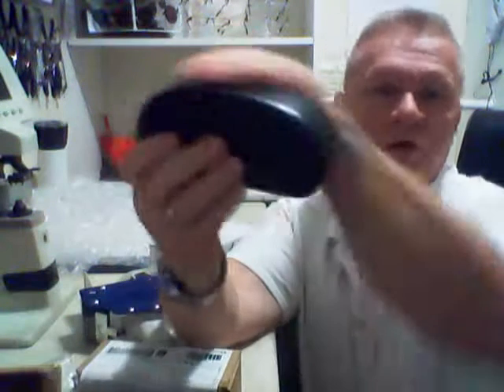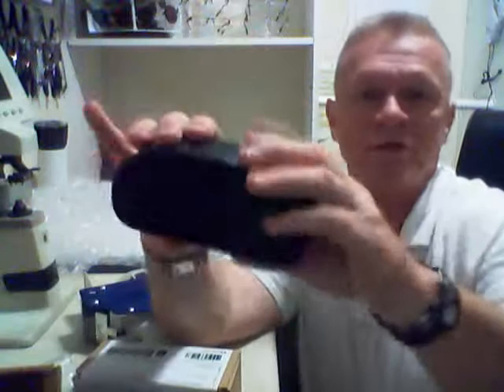Just so you folks in India and China know, the problems I have seen coming from China are that all the frames are put into the box so tight that one of three things can happen: A, the frames get out of adjustment; B, the lenses can pop out; or C, the base curve — this is considered the base curve, you see the curve? — because it's squished so much, it flattens. So that can really happen and those are things we need to watch for.